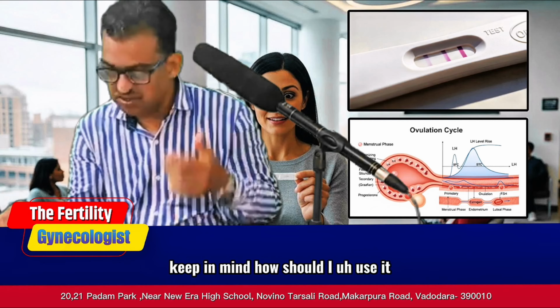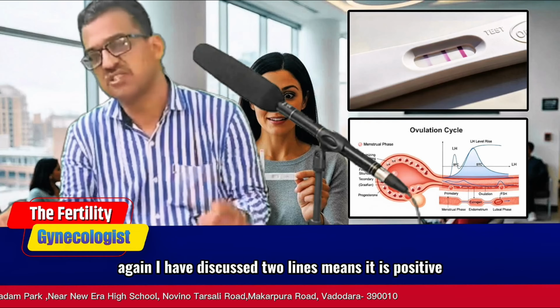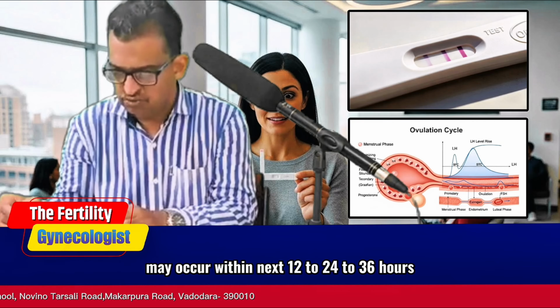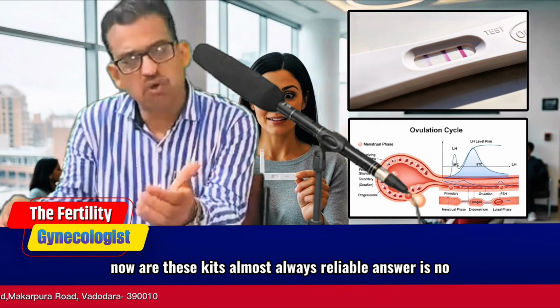How should I use it? The ovulation kit I have already discussed. How to read the results, again I have discussed. Two lines means it is positive, and if it is positive, that means ovulation may occur within the next 12 to 24 to 36 hours. Now, are these kits almost always reliable?